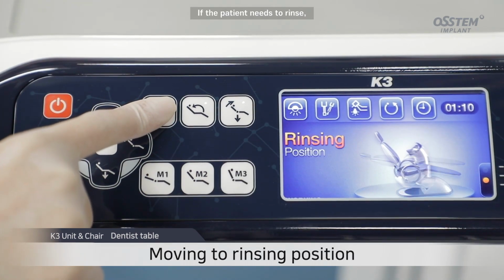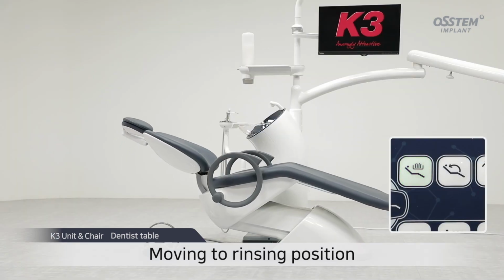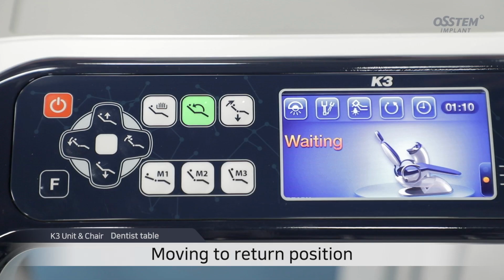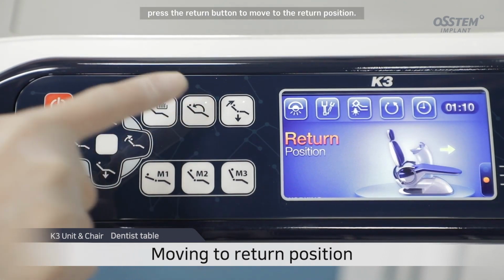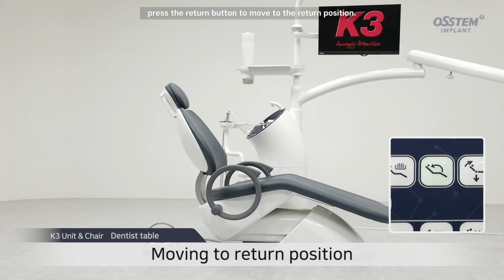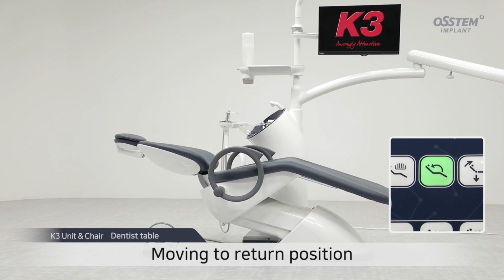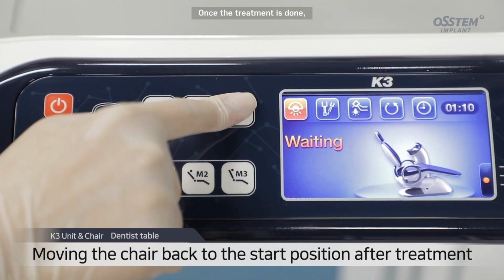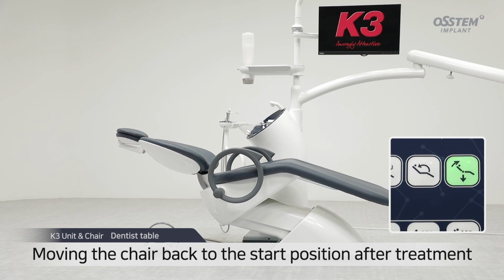If the patient needs to rinse, press the rinse button to move to the rinsing position. After the patient finishes rinsing, press the return button to move to the return position. Once the treatment is done, press the start button to move the chair back to the start position.